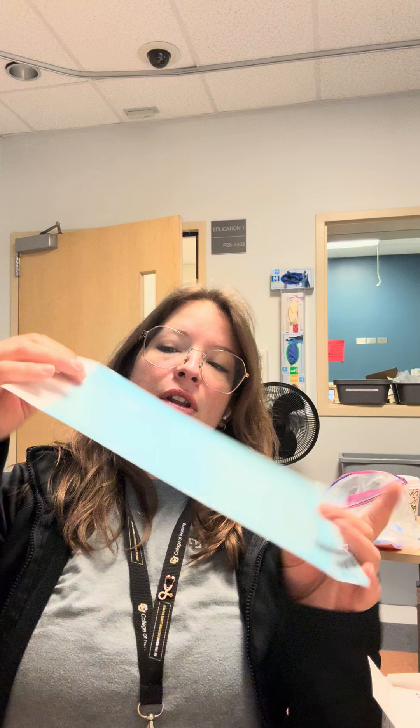There are two openings on this pouch. I'll show you an empty one. On one side, you can slide things in — this is the part that we as the SimOps individuals are going to use. The other side, the banana peel side — don't open that side. That's the side for the student.